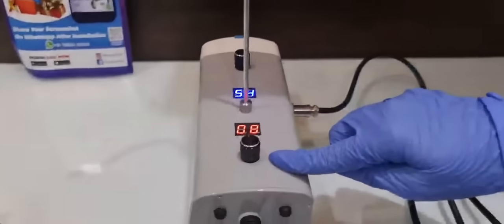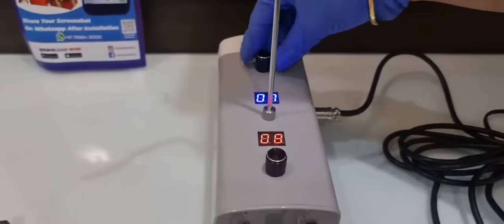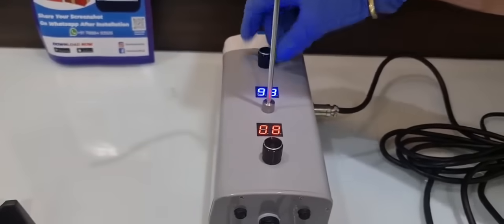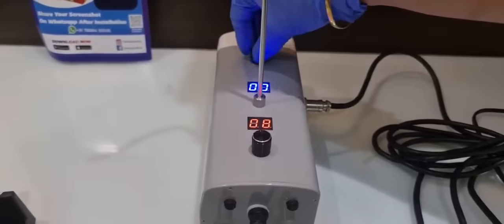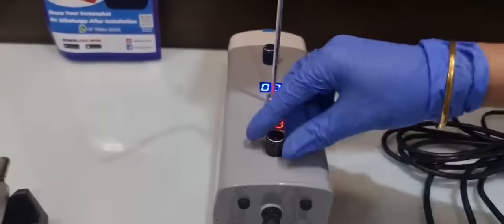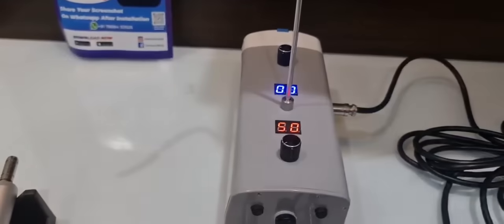These are the two controls on the top of the control panel. This one is to regulate the speed of the water. You can see it can go up to 99. This one is to regulate the speed of your motor. At present it is zero and the maximum it can go is 50.